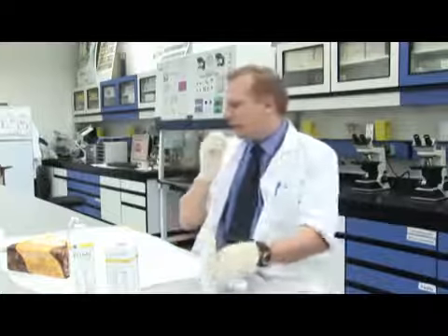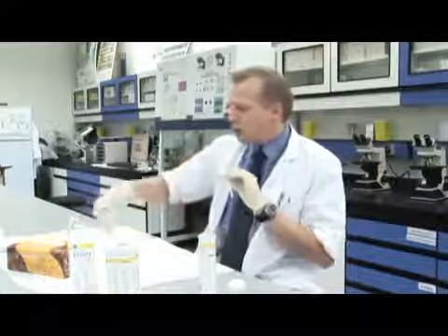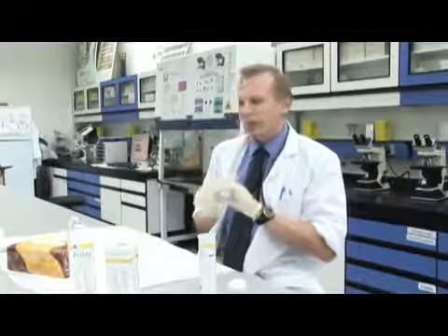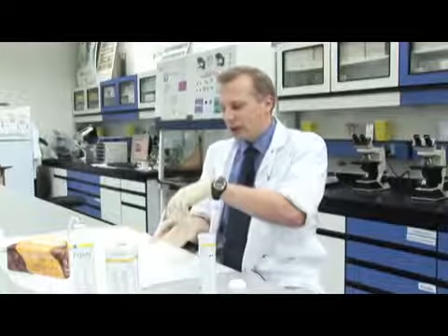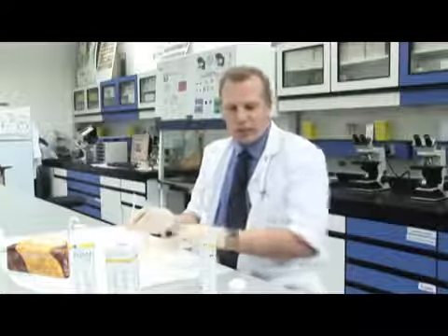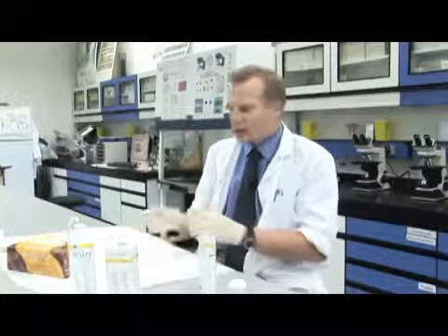I'm going to demonstrate the dipstick test on a couple of urine samples that I have here. We already know what to expect in the urine samples, so test results should be a given, providing the strips are working okay. Of course, the strips being chemically based, they have a storage life, and it's important that we don't use them past the expiration date.